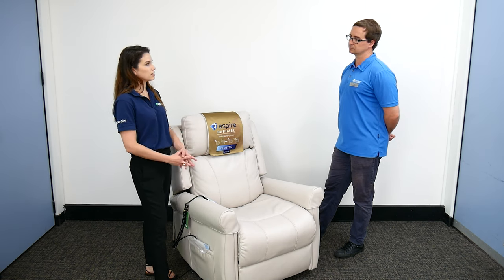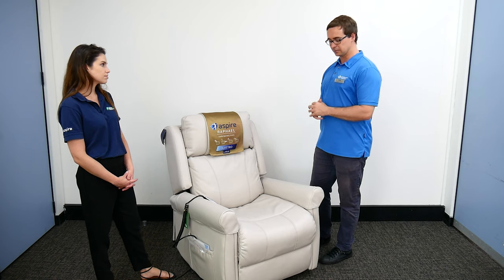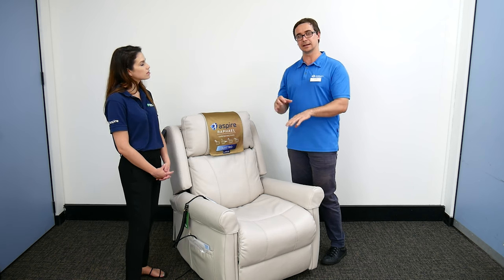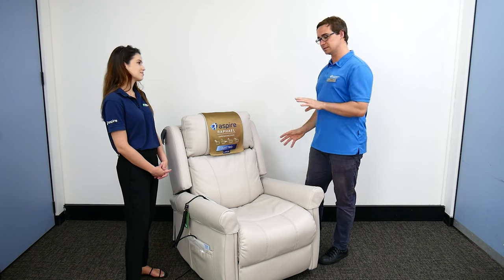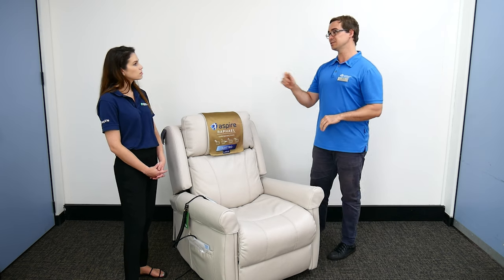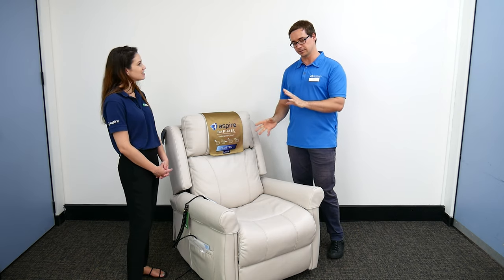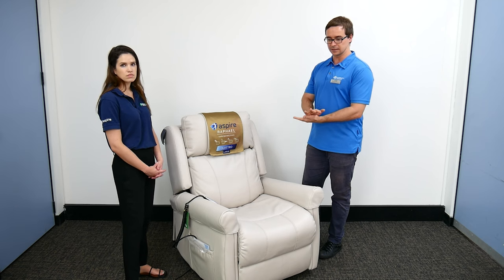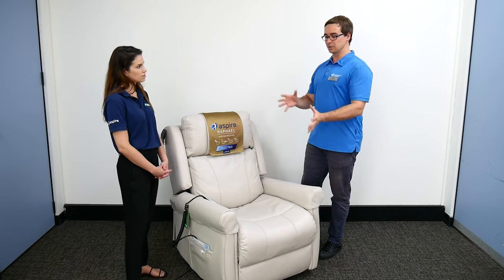For the general public: occupational therapists, allied health professionals, and equipment designers can sit somebody on a surface and map the pressure, determining how different materials — air, foam, or gel — offload someone's seated posture, particularly at the bony prominences like the ischial tuberosity and sacrum. For people living with mobility concerns and complex comorbidities who spend a lot of time sitting, it's important to ensure that seated pressure doesn't create a new problem while we've addressed other care needs like transfers, comfort, and posture.